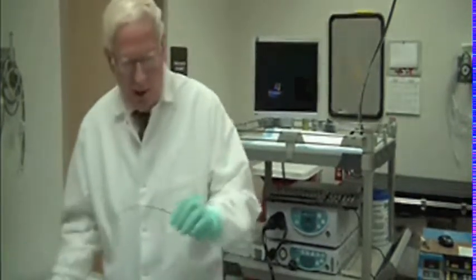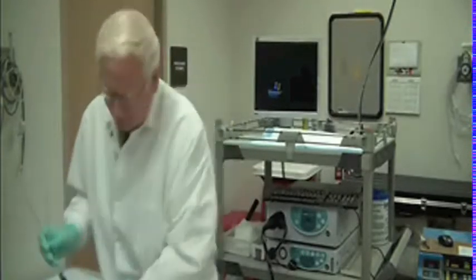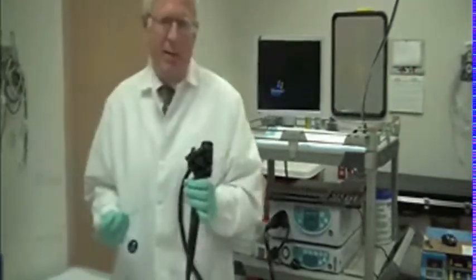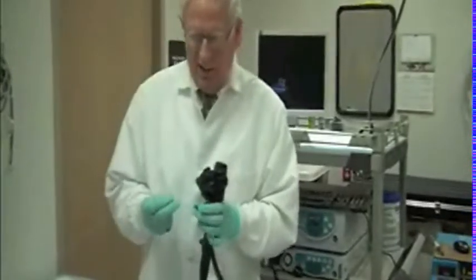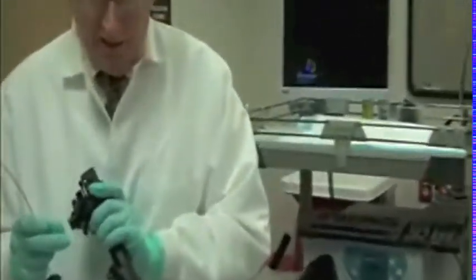The wire stiffening device is easy to insert. The tip is tapered and manufactured so that it passes easily down the biopsy channel in a very atraumatic fashion. And as mentioned, it will not extend beyond the tip of the colonoscope.